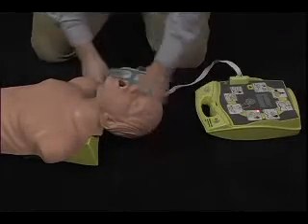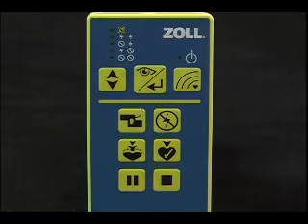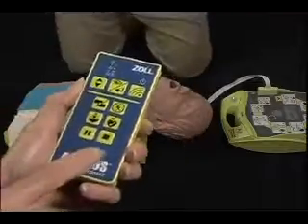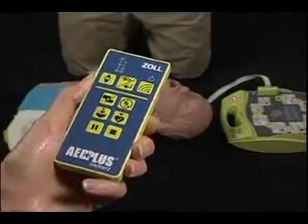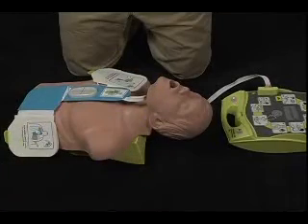The bottom right button can be used to stop a scenario that is running or paused. Push the stop button once to stop the scenario. Unlike pausing, stopping resets the scenario to the very beginning.